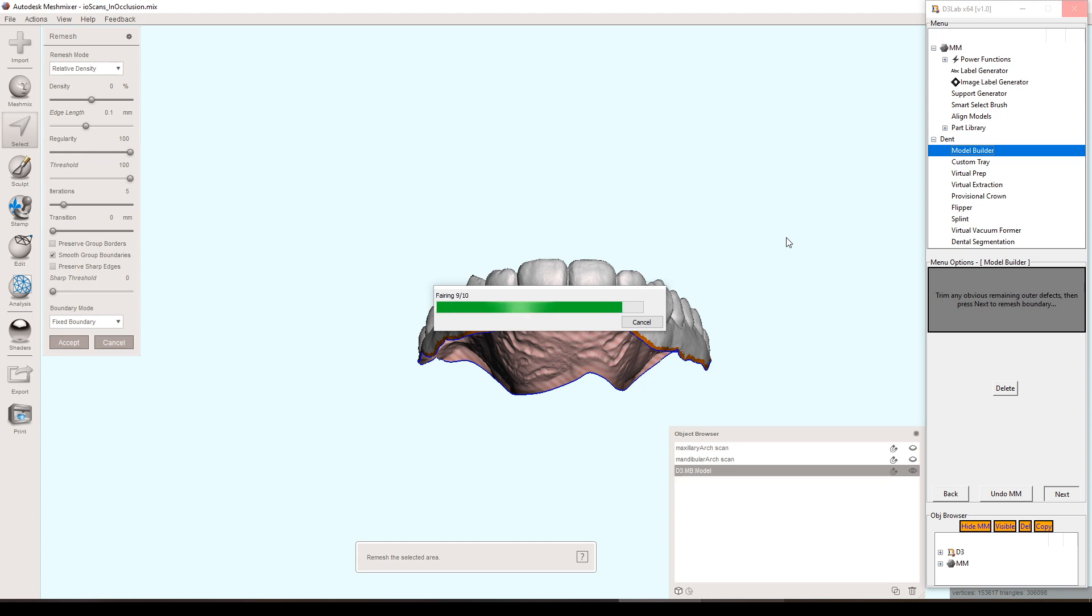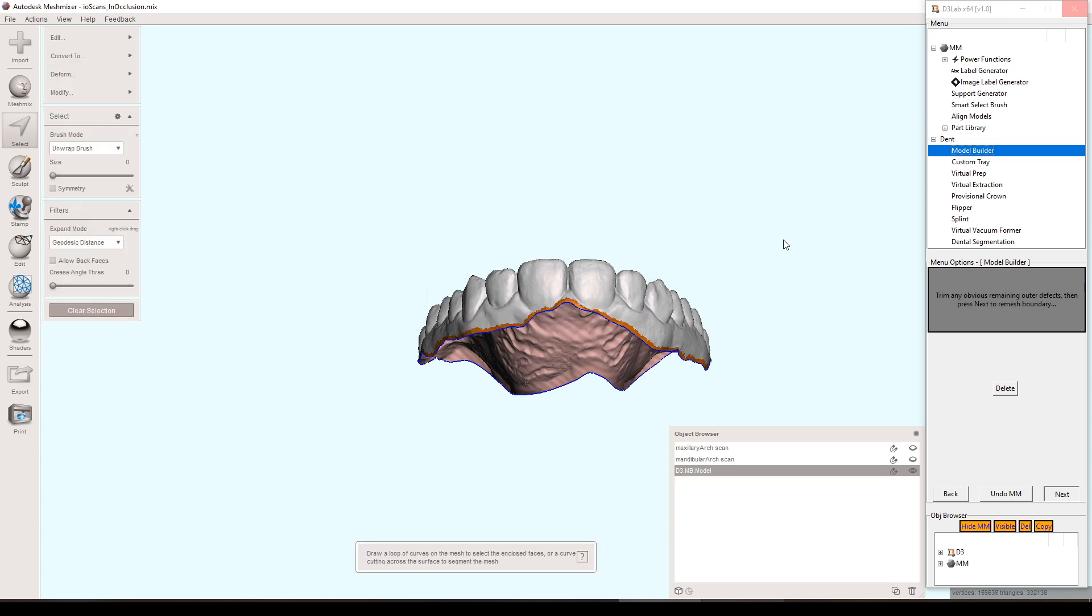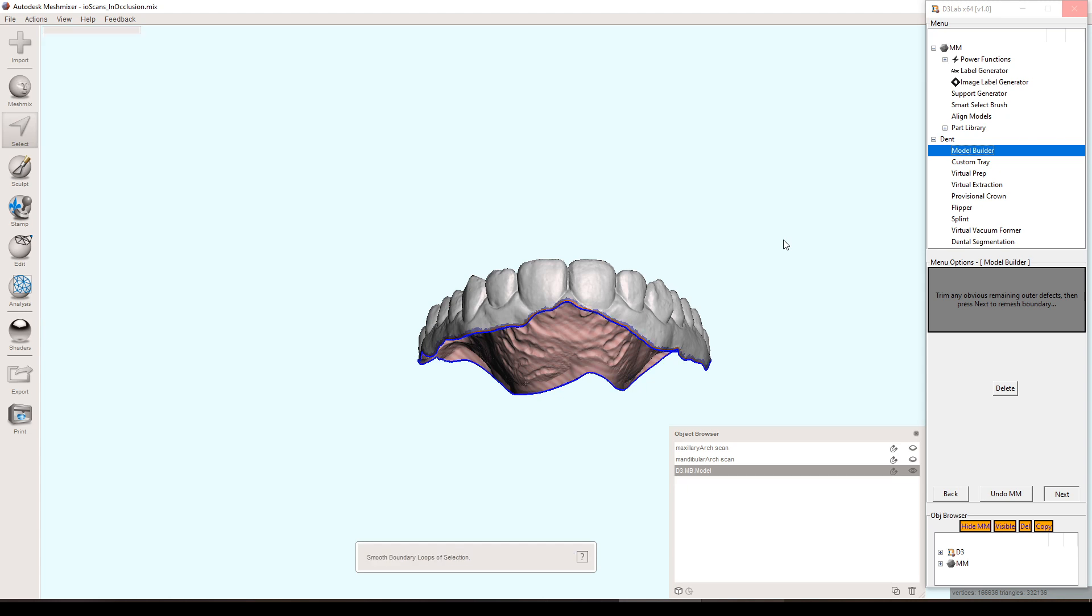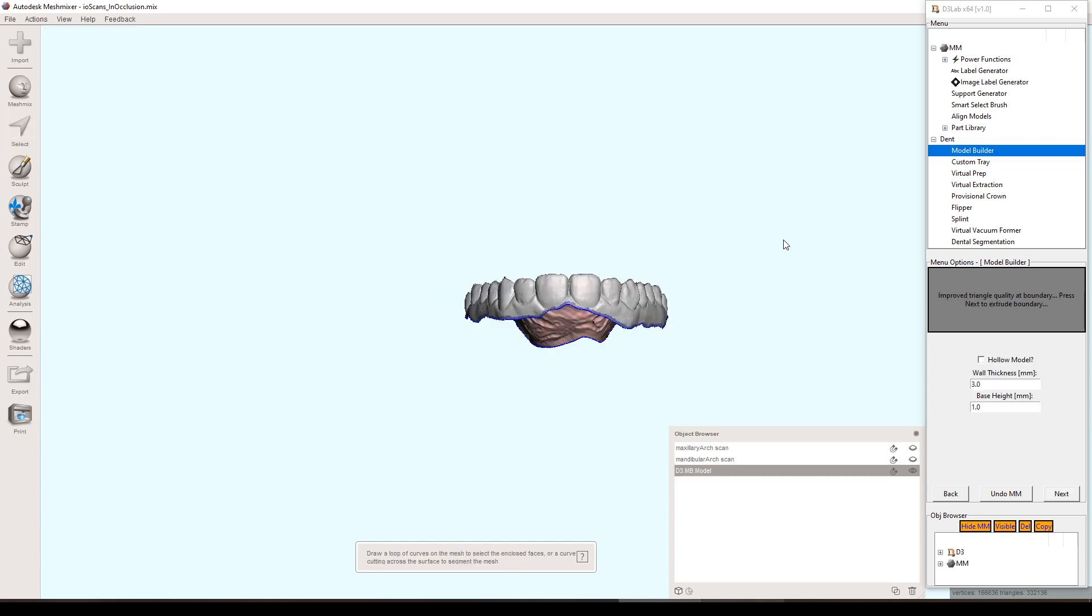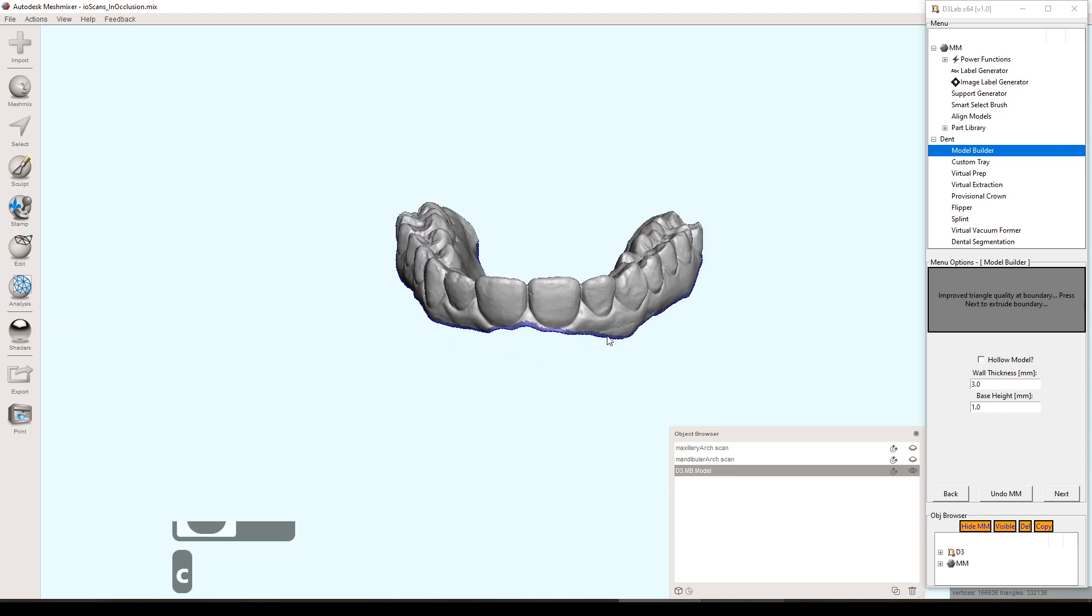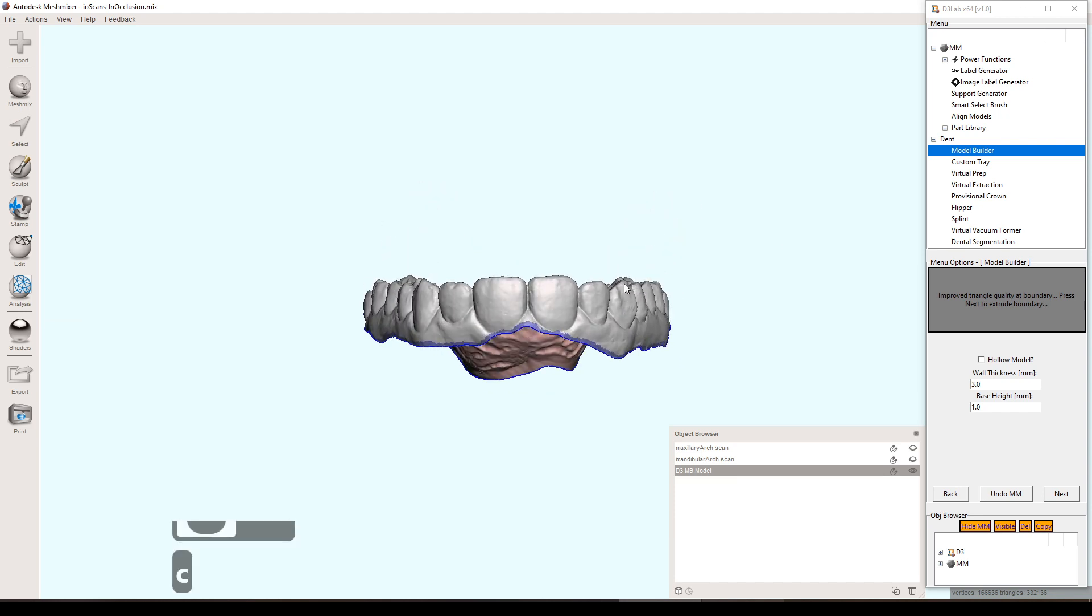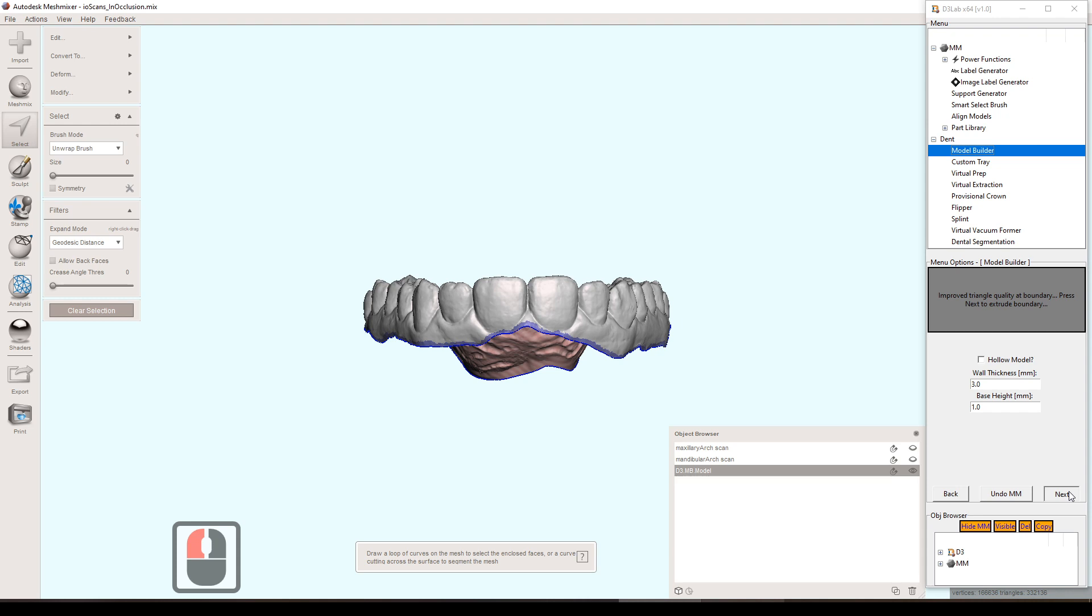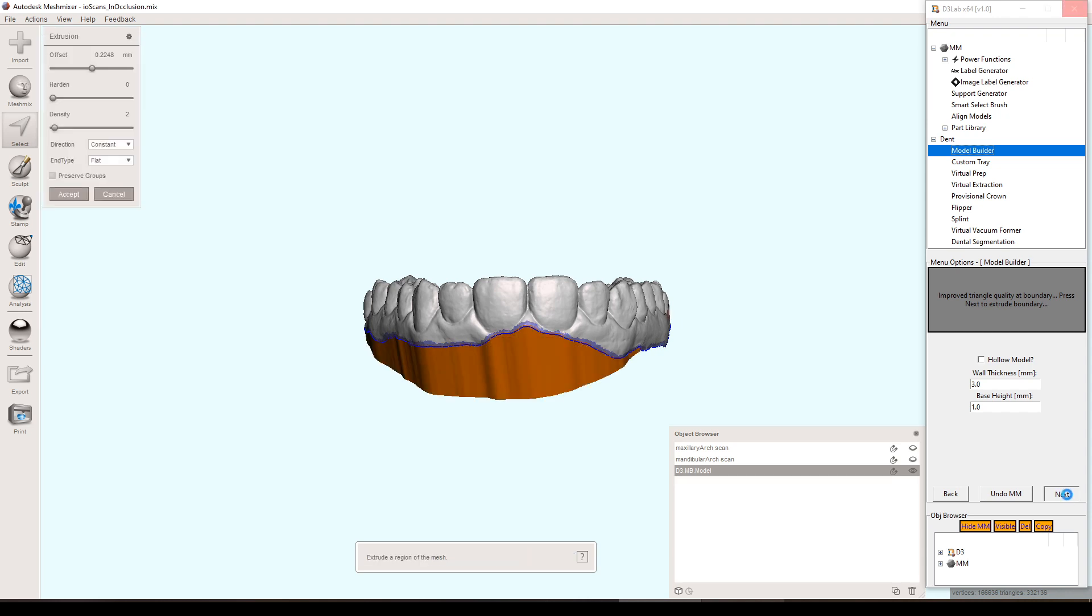And it goes through the first several steps here, which is just kind of making that boundary just a little bit easier to extrude to base the model. A couple of different things with the model building tool. I took out several of the steps so you don't have to hit next so many times. It will just do like filling the holes and some other things just automatically. But this step, you can see that the hollow model option is ready to go in case you do not want to hollow your model, which is the case sometimes, you now have that availability and it will work just fine. Wall thickness, like usual, if you're hollowing, same thing with base height. And then you hit next.